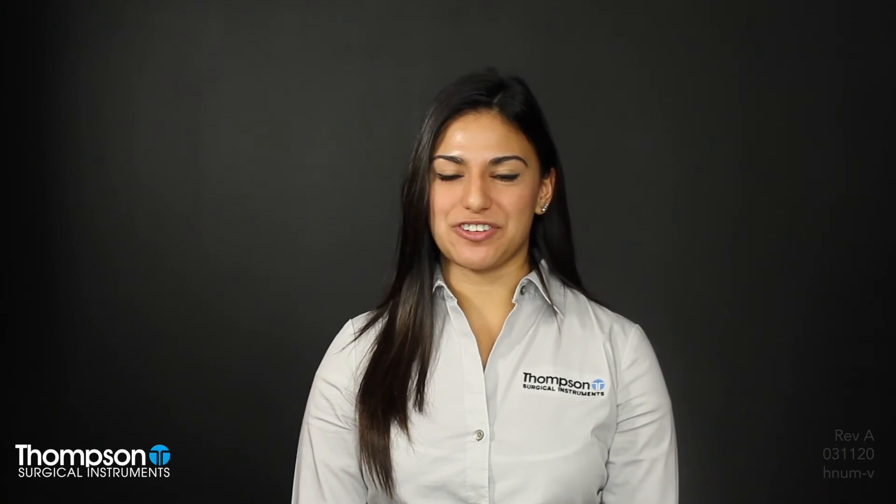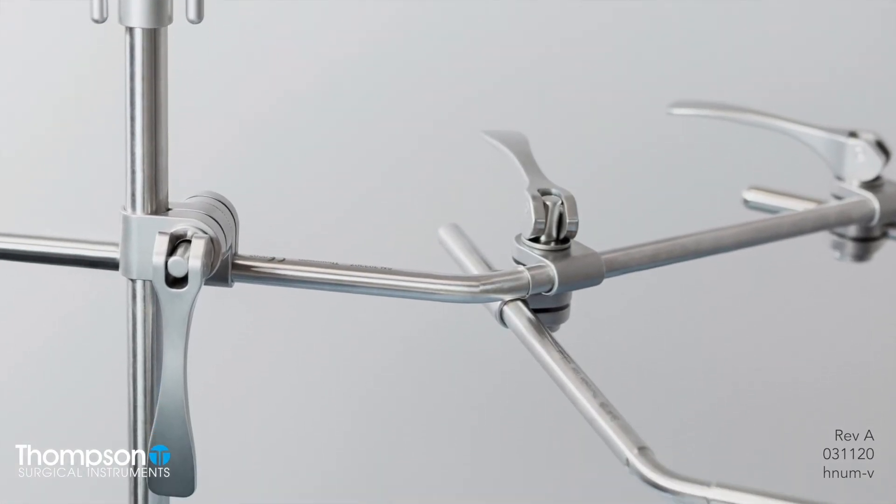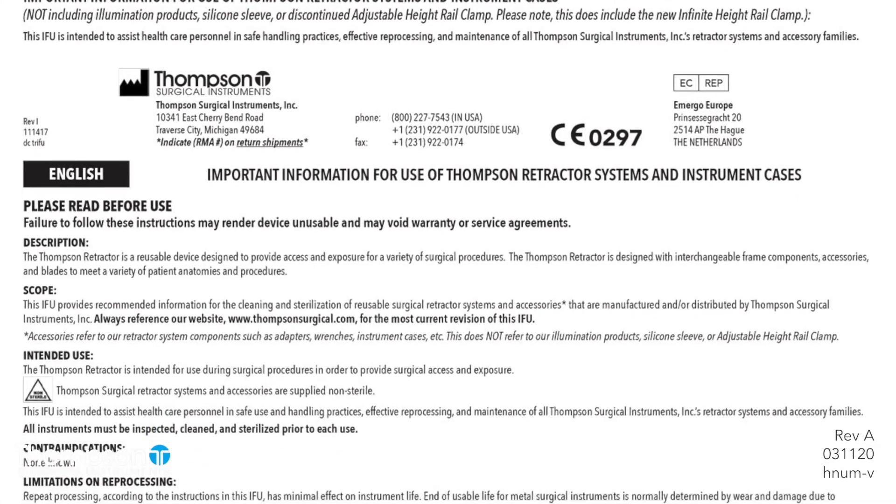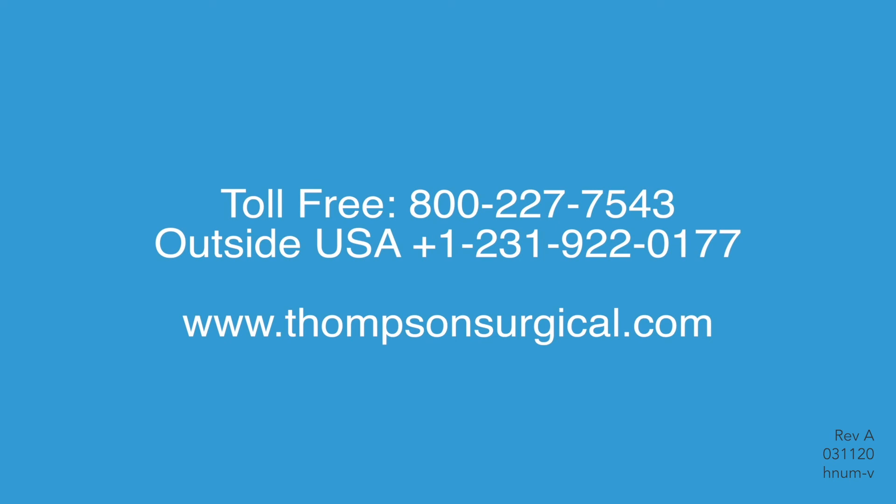Well, there you have it. You're all set up and ready to use your Thompson retractor system. Be sure to thoroughly read through the Thompson retractor user manual and IFU before use in surgery. If you have any questions regarding your new Thompson retractor, give us a call. We're always here to help.